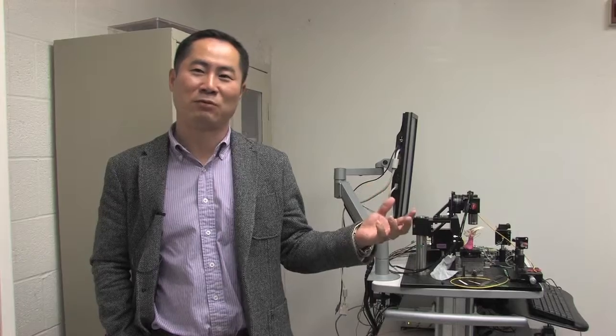This is an engineering laboratory where we build devices, test them, and then once we build them, we usually send them to a medical school or robotics facility for testing and validation. There's a lot of cooperative research that goes on here.